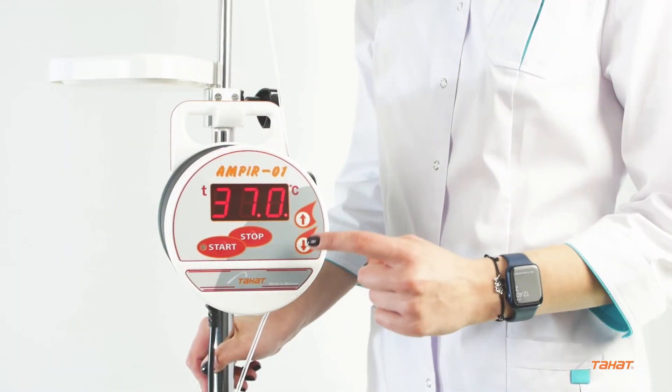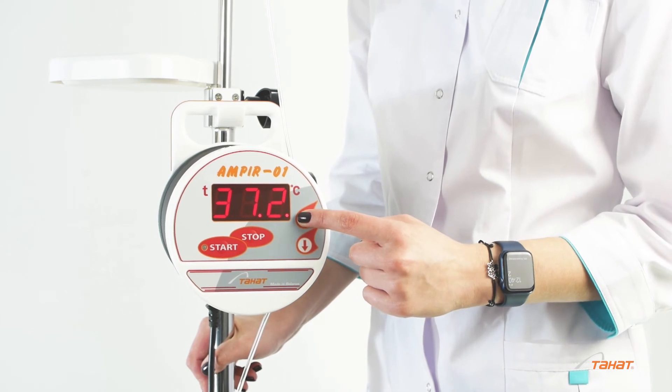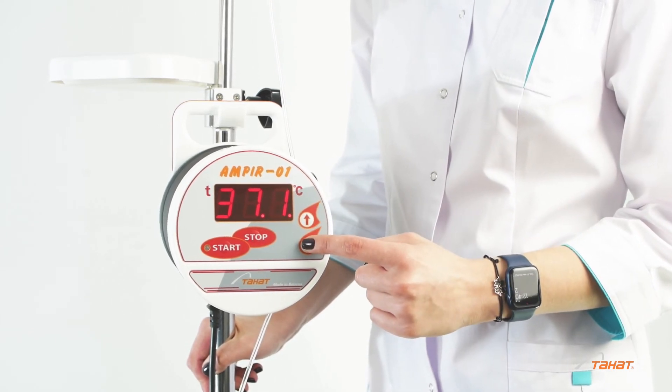To change the temperature, press the stop button. Change the temperature and press start.